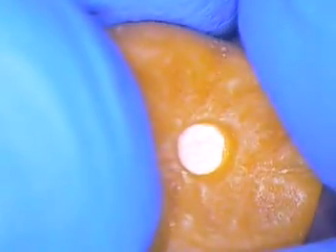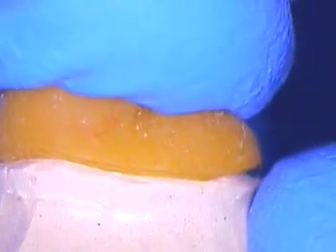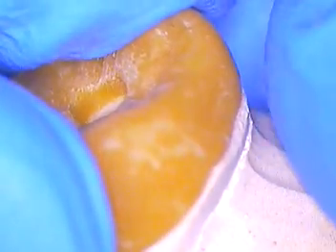It's not like placing a wax spatula or dipping things onto a die, as we used to call the dipping process — I think that was started by Belle de St. Clair. This is a company I use out of Massachusetts. If you look real close, you're going to see there is absolutely no space, no dead space between this pattern and the die itself. You're seeing amazing adaptability. You can also see how the technician cut away the margin, leaving only the wax-to-margin adapting and finishing for the lab. The fit on these cases is absolutely textbook. Even under 20 power, you can't tell any seam or any opening anywhere. It's just amazing — the technology here.